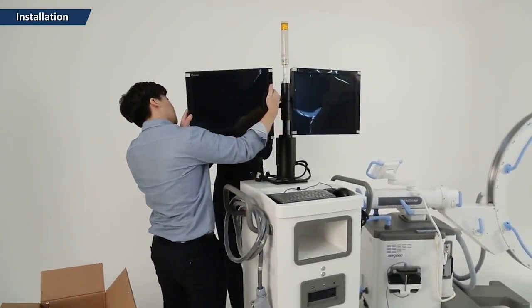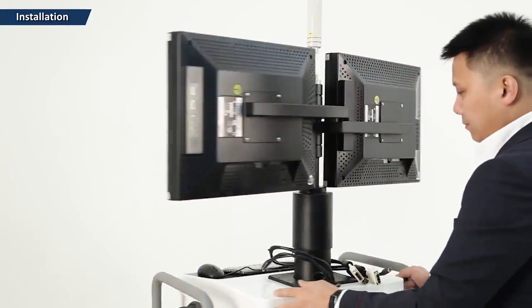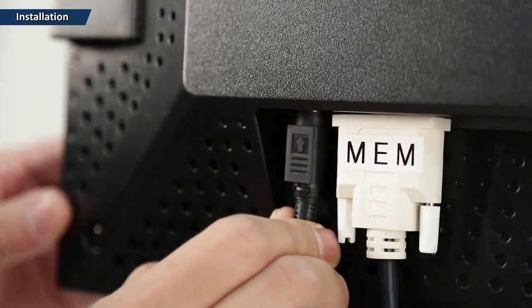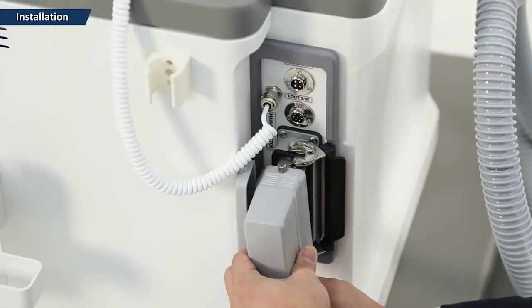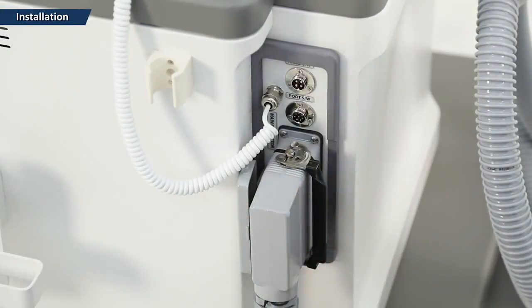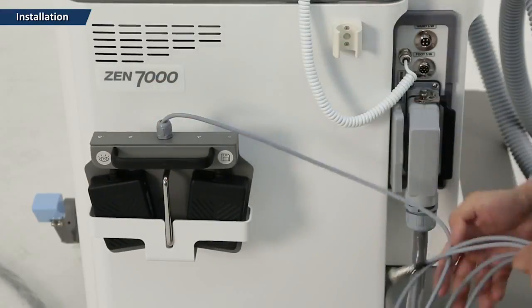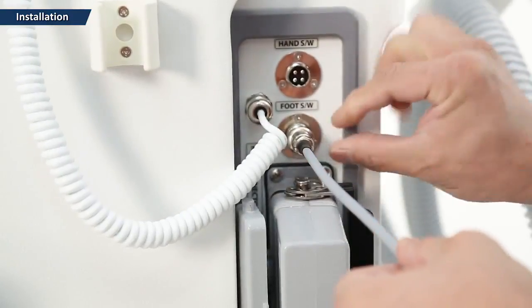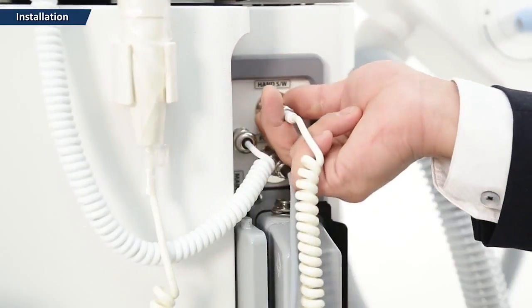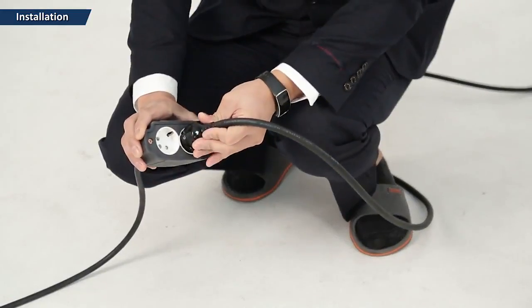Assemble the monitor after opening the box. Connect the monitor with the cart cable and connect the power.